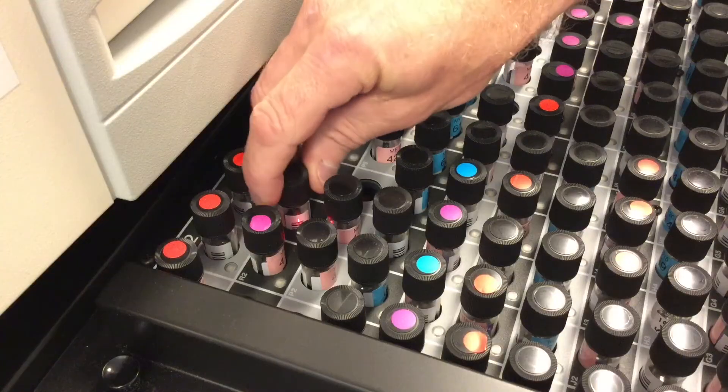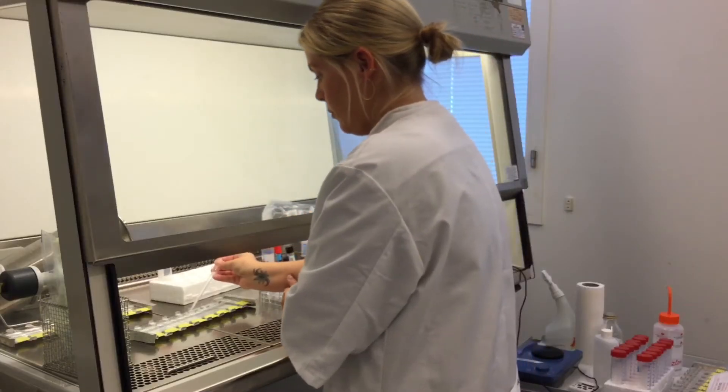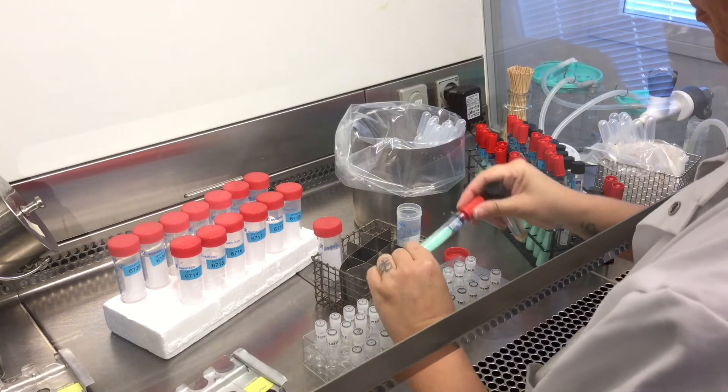It's difficult because first of all you want to have environmental bacteria separated from the sterile samples you take from the machines, so you don't contaminate the samples yourself. Secondly, they grow very slowly, so you need the right culture media and the right equipment, and also you need to be able to do all the different PCR methods necessary to be certain that it's chimera.